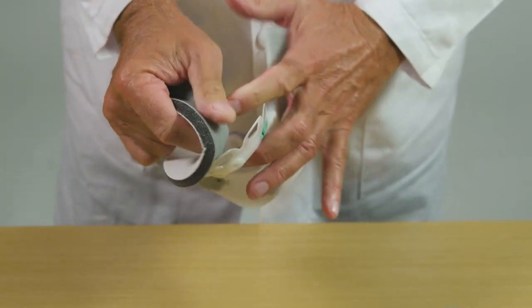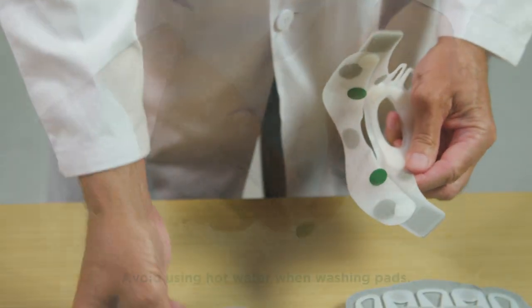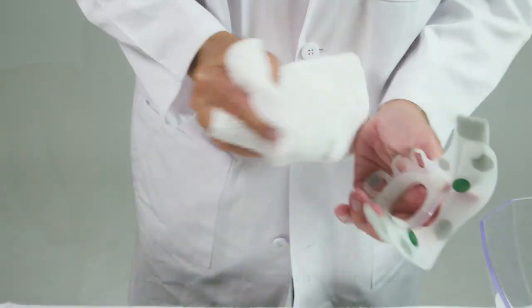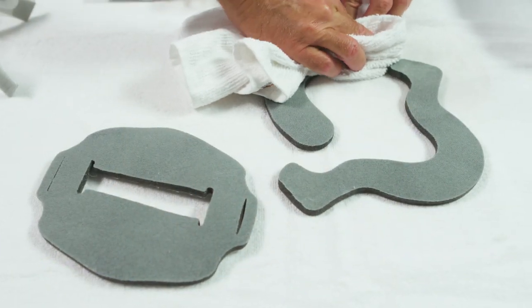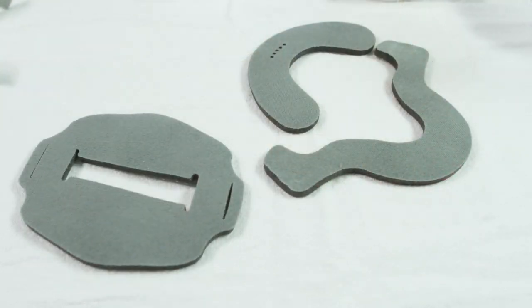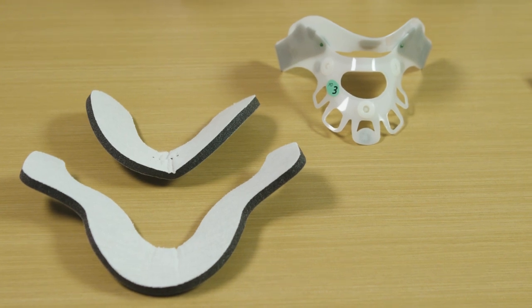The hypoallergenic cotton lined pads are designed to be cleaned or replaced on a daily basis or when needed. The collar may be rinsed with mild soap and water. Rinse and fully wipe dry the collar prior to reapplying the clean pads. Hand wash the pads with mild soap and rinse thoroughly. Gently squeeze the pads, place them on a clean towel and press down to remove any excess water, then allow to completely air dry for several hours.